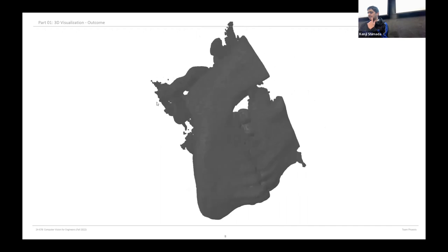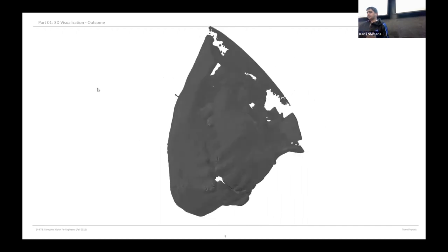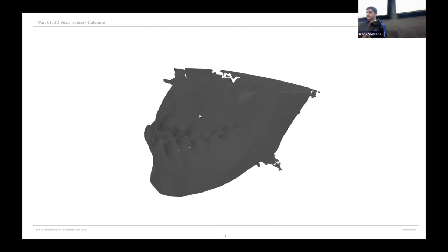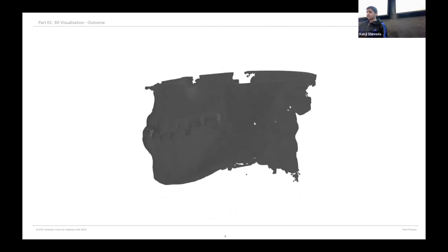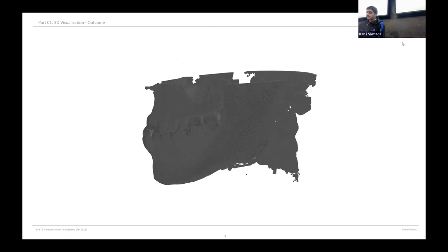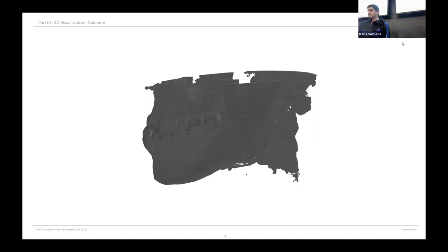From the video, you can see that the mesh 3D model which uses the vertices generated by the mesh is created using the point cloud. Here we can see that the resulting point cloud is not as refined as it contains much unnecessary information such as bones, muscles, tissues, etc. Hence we need to do more processing on it to segment out tooth information and carry out further analysis of tooth detail.